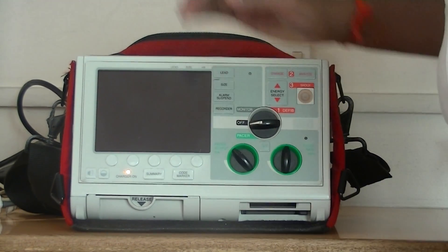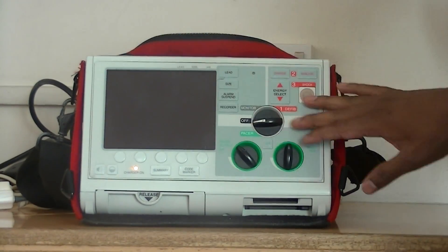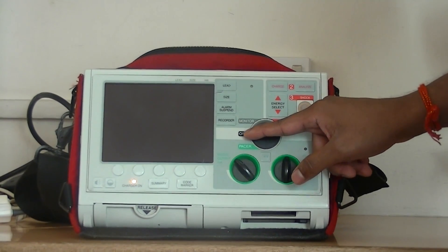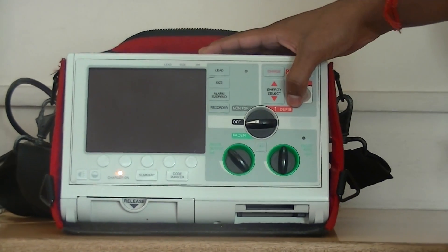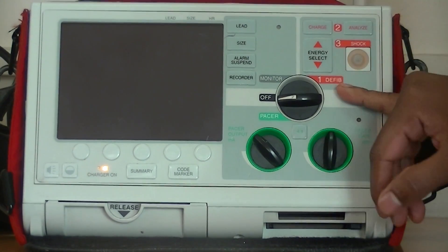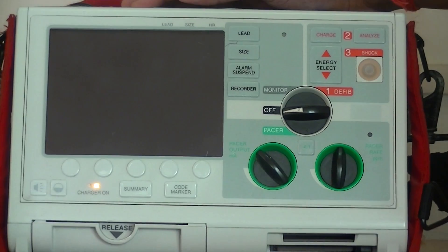Hi guys, I am going to demonstrate how to use an operating system of the Zoll defibrillator, which is the M-Series. As you can see in the video, there is a button which indicates it is in the off mode, which is the on and off. You can see the monitor display and defibrillator options. This is a biphasic unit where you can use this for defibrillation, pacing, synchronized cardioversion, and also as an automated external defibrillator — AED.